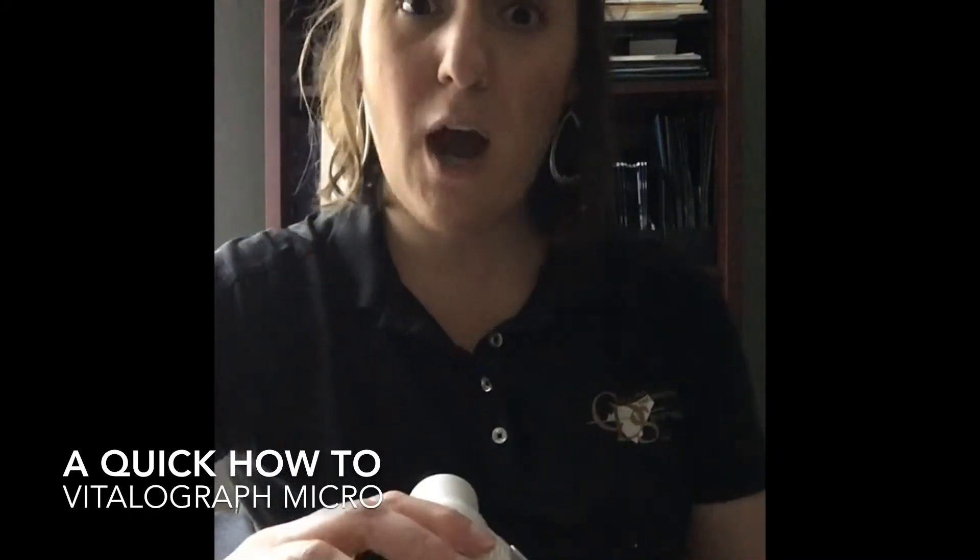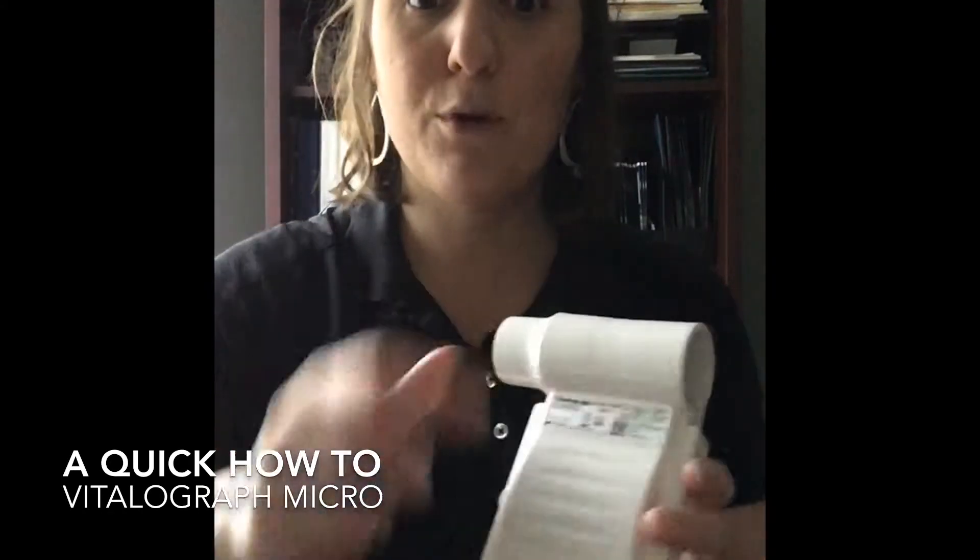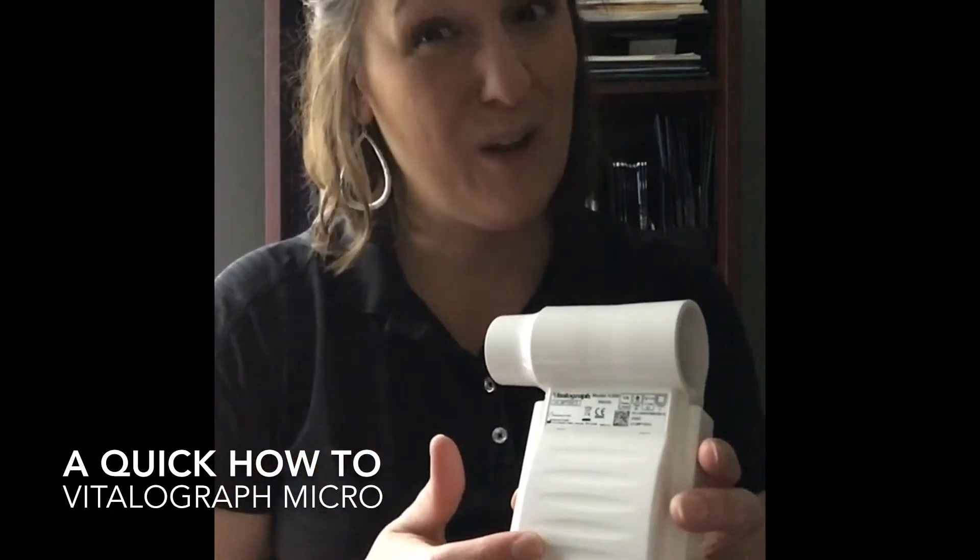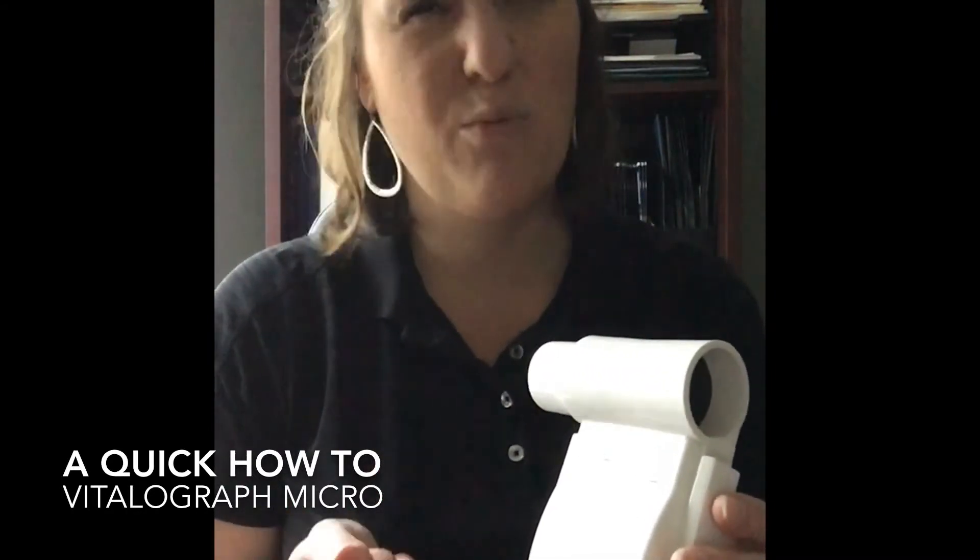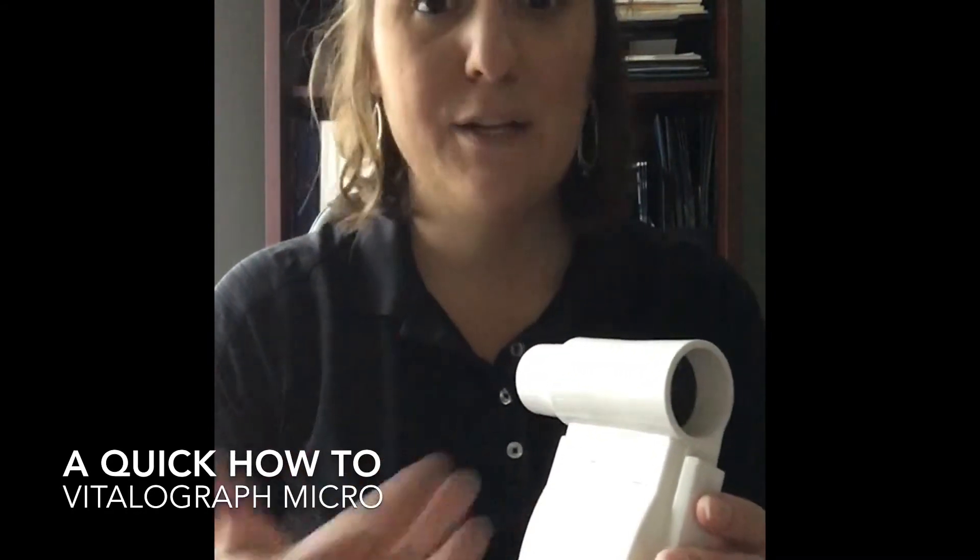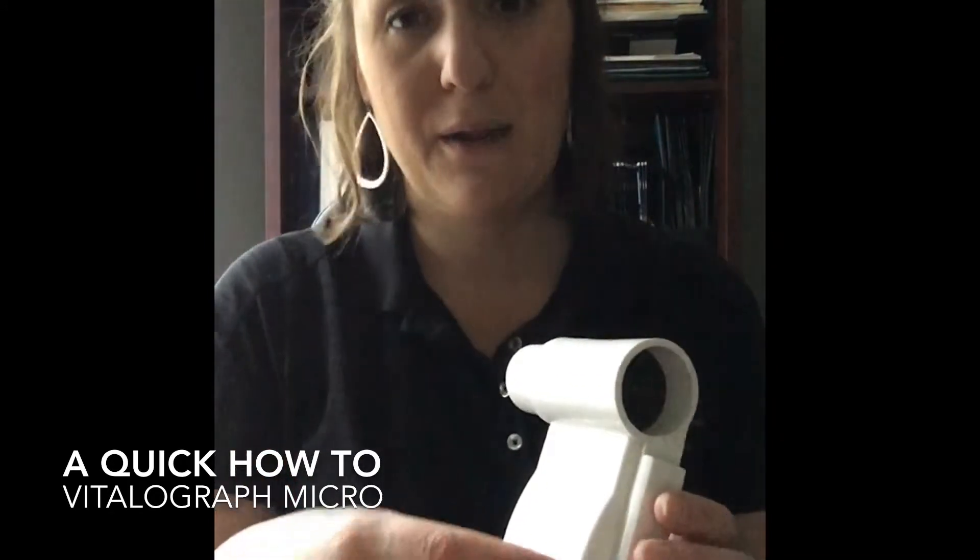To operate this device you're going to need four AAA batteries. I've already got fresh batteries loaded. The batteries, if you use this every day, are going to last you about four or five days. It doesn't have to be recharged, so you can simply buy rechargeable batteries, pop them on the charger, and then change them out as you're working through the clinic day.